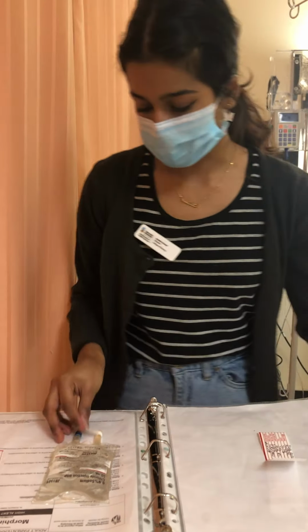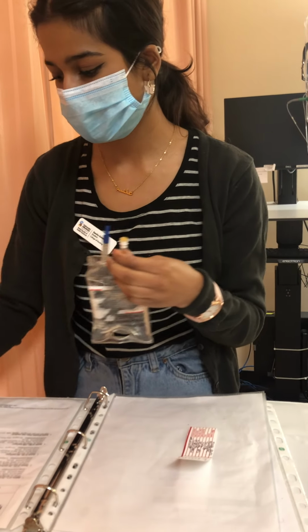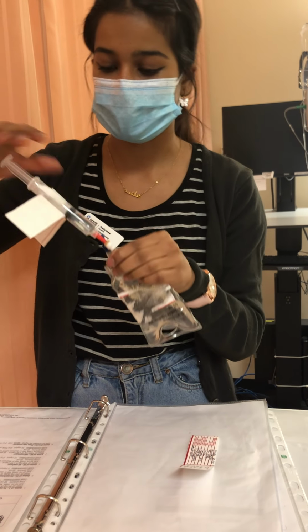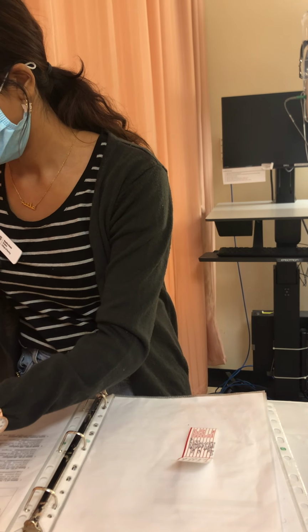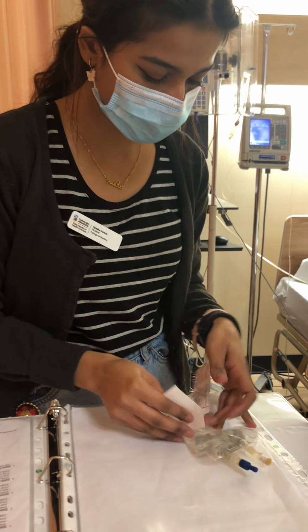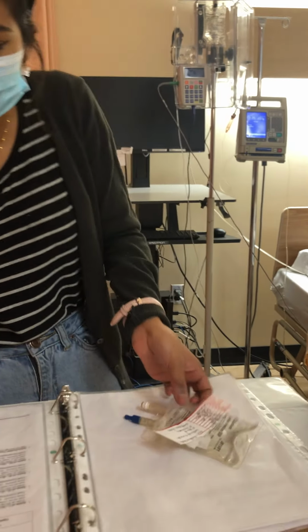So I'm going to use an alcohol swab to clean this for 30 seconds, dry for 15, done that. And then I'll go ahead and aseptically inject this medication. So 5 mils, I'm going to inject it into my bags to ensure that I have the volume of 50 mils because there's 45 mils in the bag. So this can go into the sharps container. I'm going to attach my label, and at the time the bag was supposed to be documented. Wrong side. I'll attach my label here.